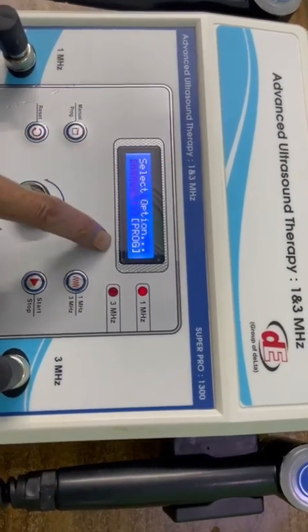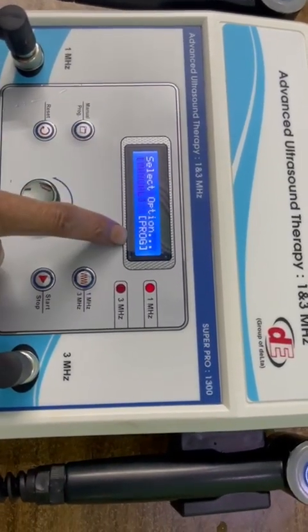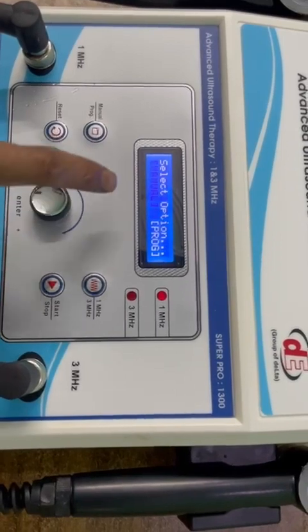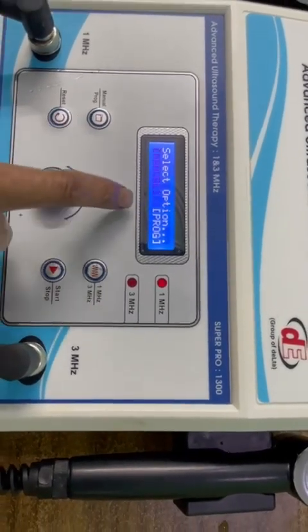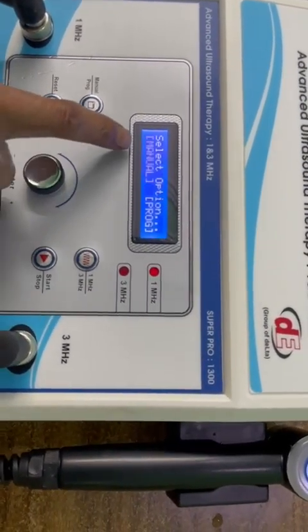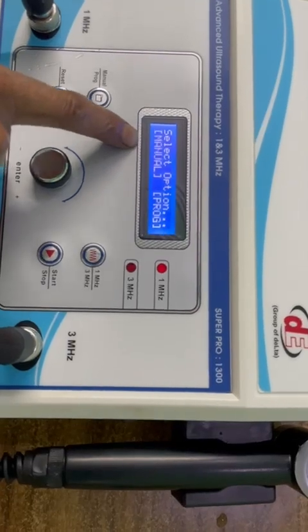Now two options are showing: manual or program mode. Now press. We can use it in manual mode, also in programming mode, but we test it first in manual mode.